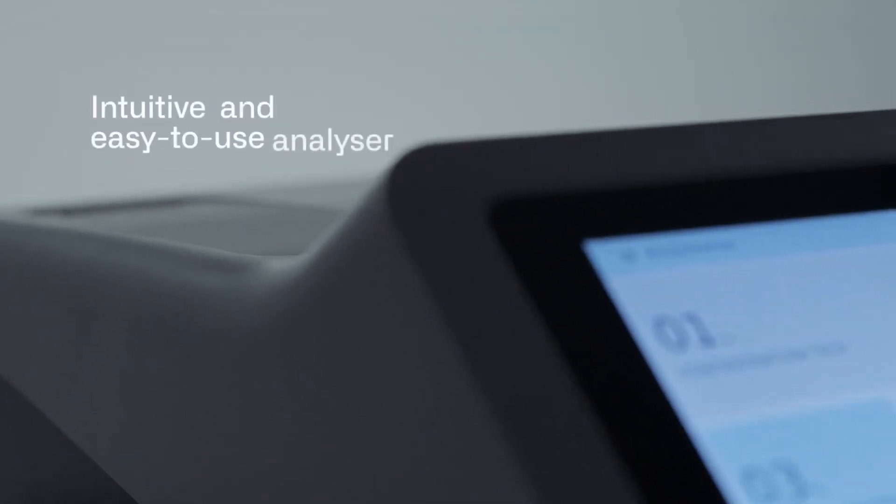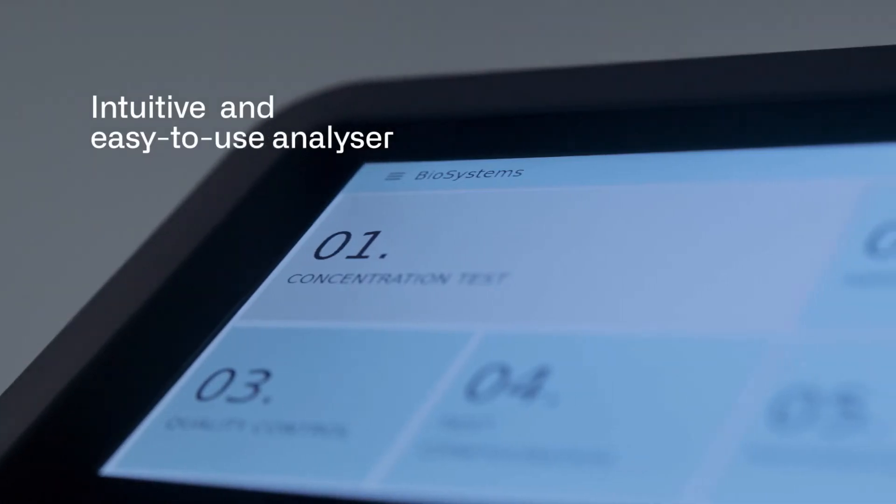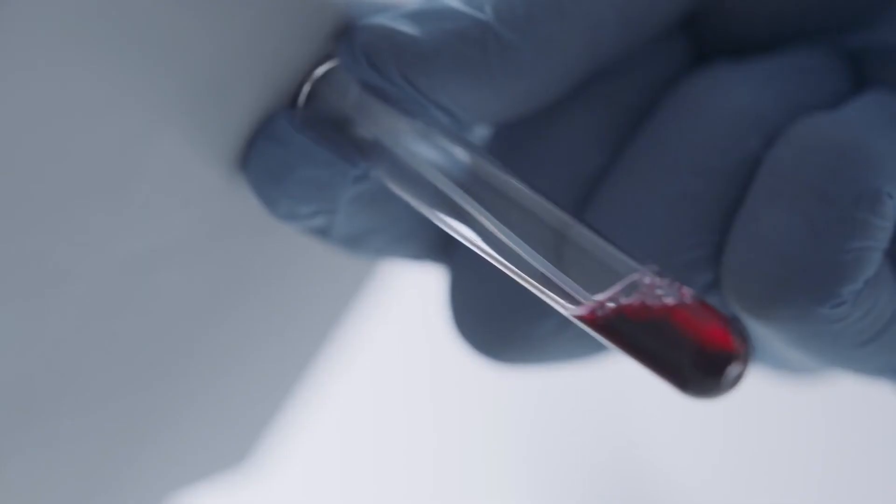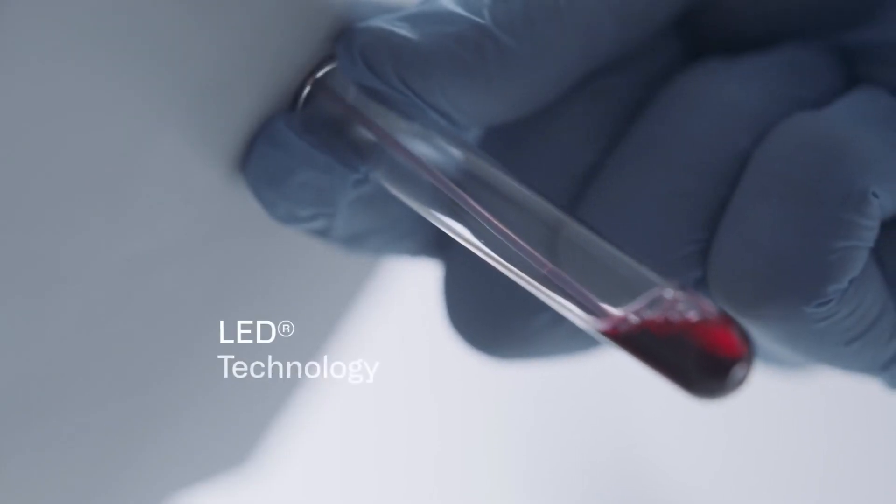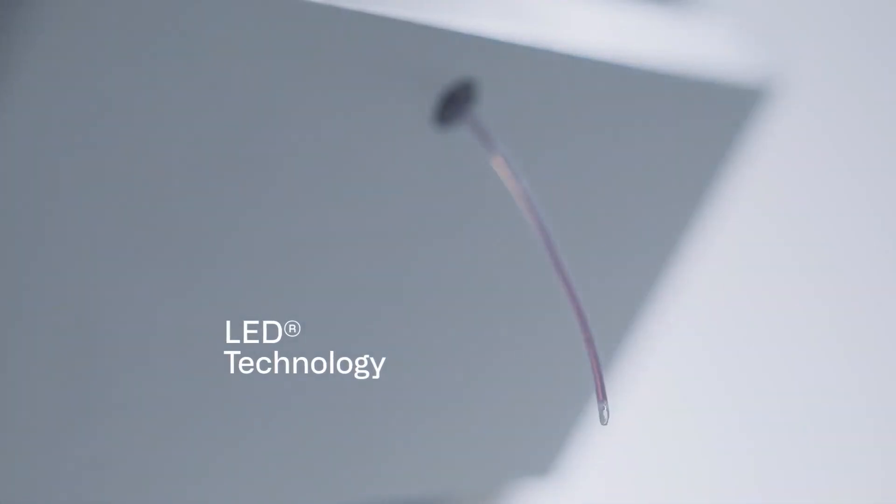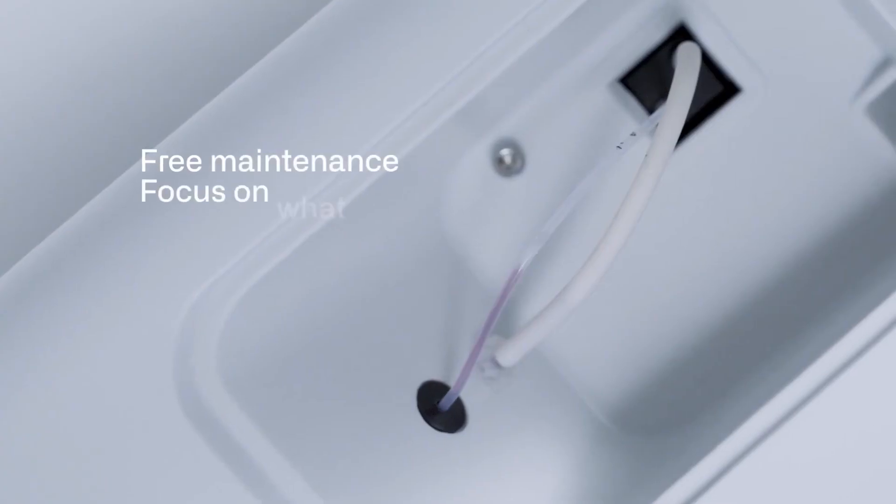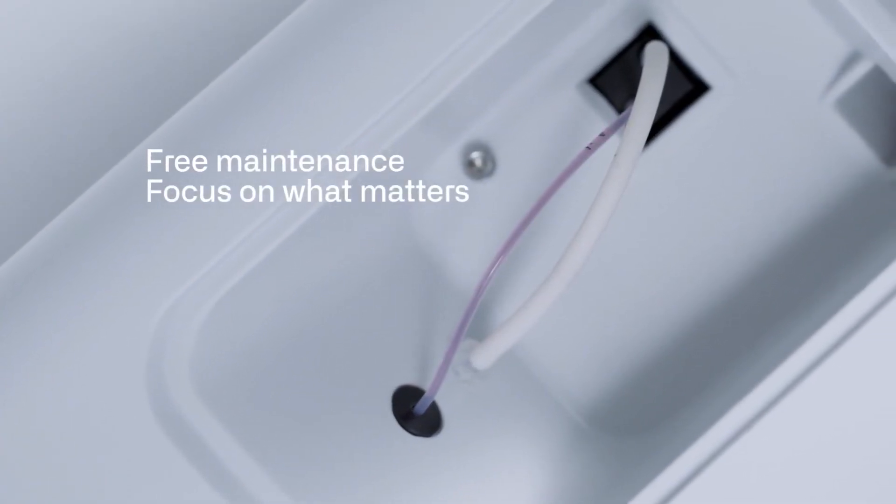Semi-automated biochemistry analyzers work based on two measurement methods, optical techniques and electrochemical techniques. The working is similar to that of the fully-automated biochemistry analyzers. The main difference is that semi-automatic analyzers are more practical for use in smaller laboratories and medical practices.